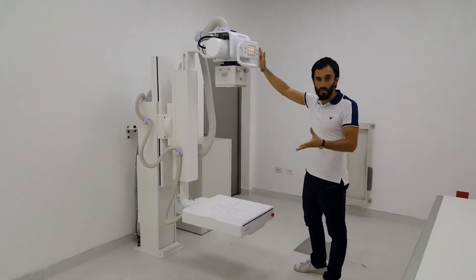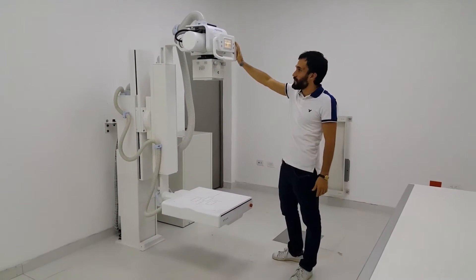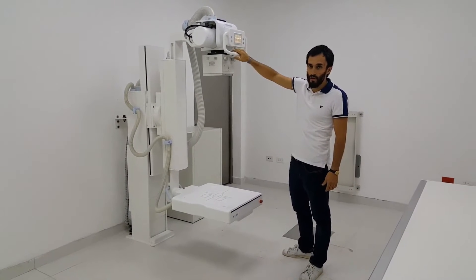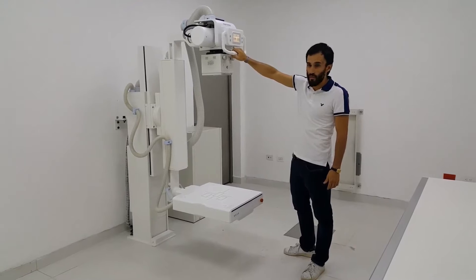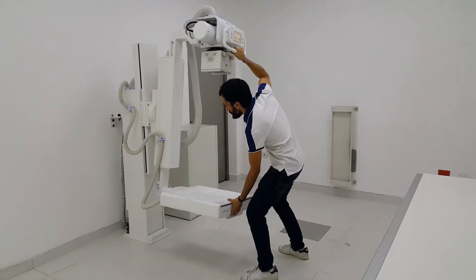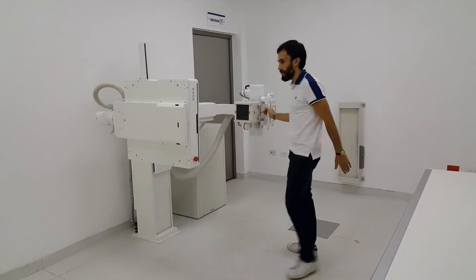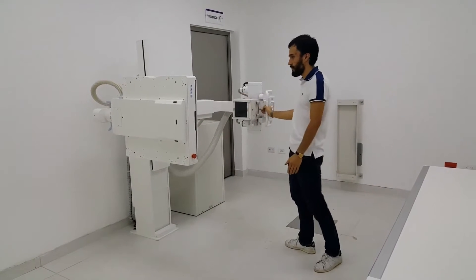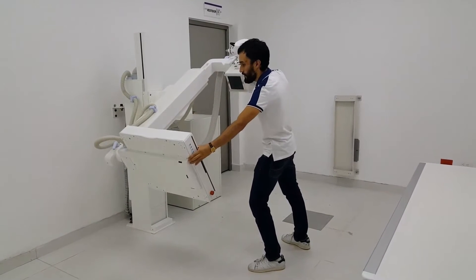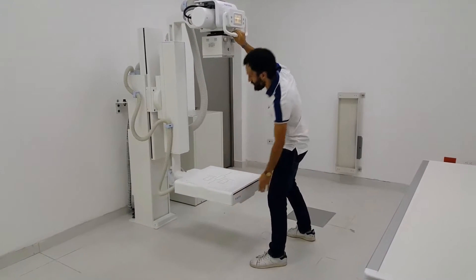To show you about the mechanical movements of this system: we have here a sensor but also a switch where we can move the system in different positions. You can put it in a horizontal way, move it 45 degrees, or place it at zero degrees.